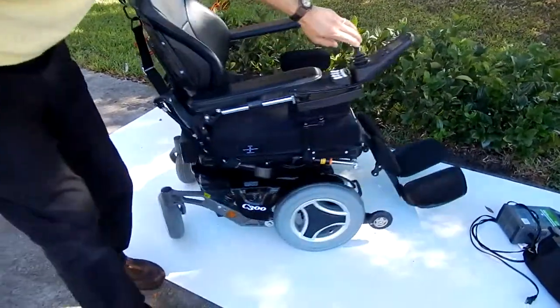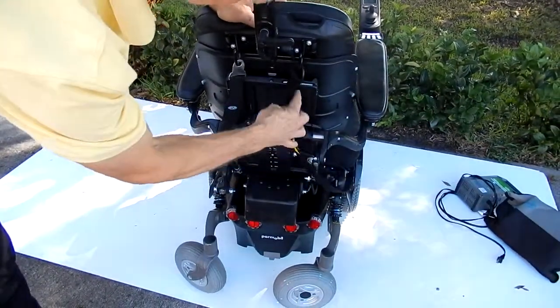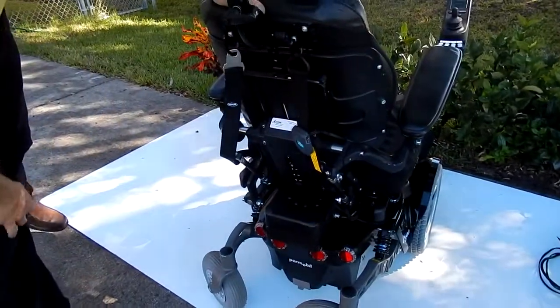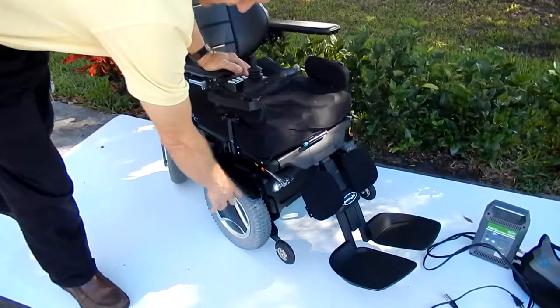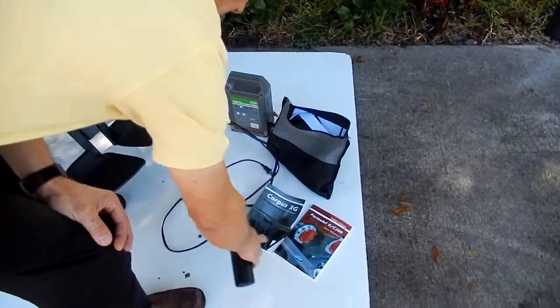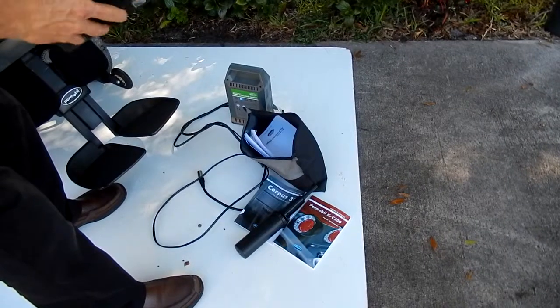This is a fantastic chair. You do have a safety belt right over here, hooked up over here. The seat is adjustable. The height of the arms are adjustable on these tracks over here, and the tilt of the arms are adjustable with this handle over here. You've also got reflectors back here. The tires are practically new — solid tires all the way around. This chair comes with all the manuals you need: the owner's manual, the seating manual, the pump for the seat, the charger, a tool kit, and there's also some Velcro support to put behind the seat if you need more lateral support.